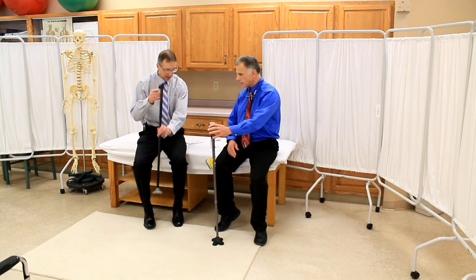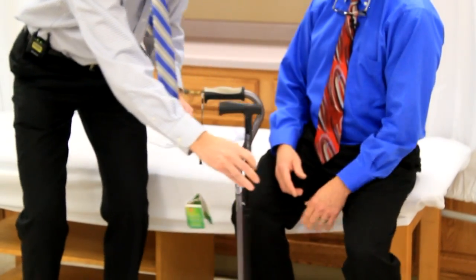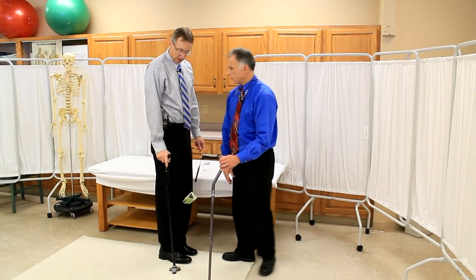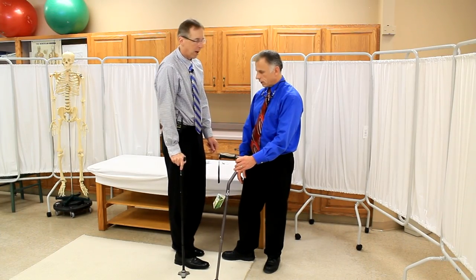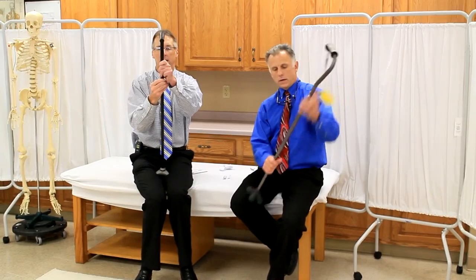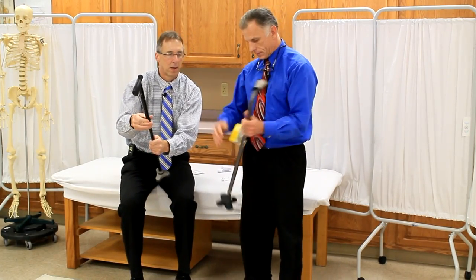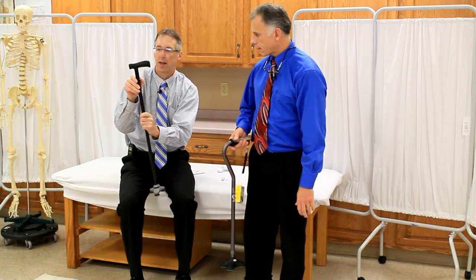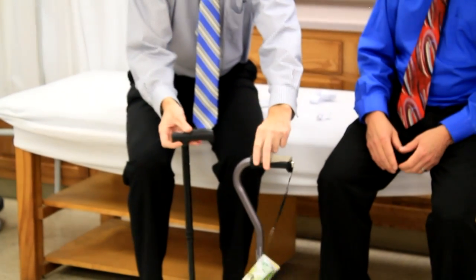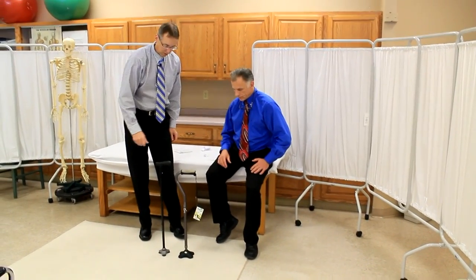Let's talk about height. Both are at maximum — this one, the Hugo, goes a little bit higher. I'm 6'6" and this is a little higher than I'd need. The Hurrycane at max is about an inch low for me. If you're over 6'6", this one's probably too short. They both work the same way — a twist collar and push button for telescoping adjustment. Looking at minimum height: this one goes lower than the other, and higher at the top, so a little more variability in height range overall.